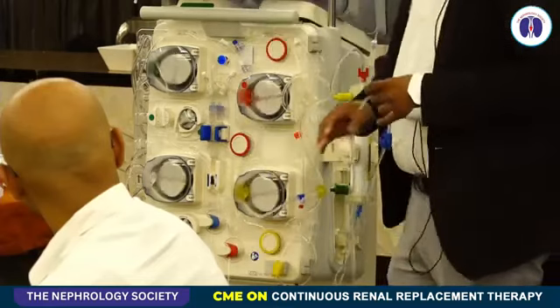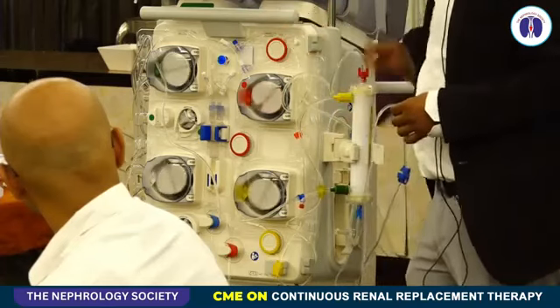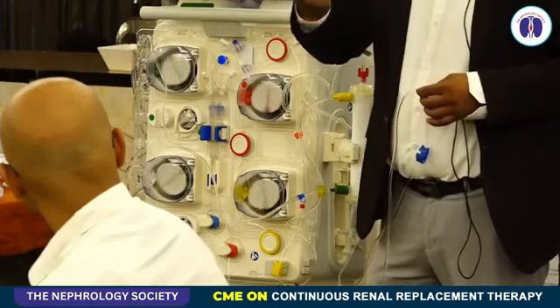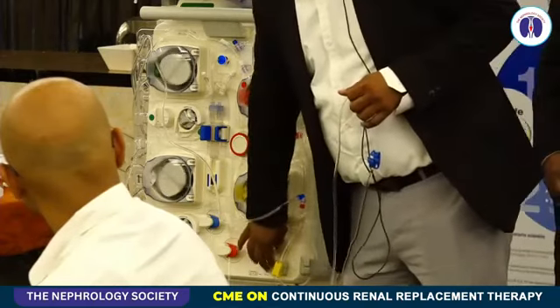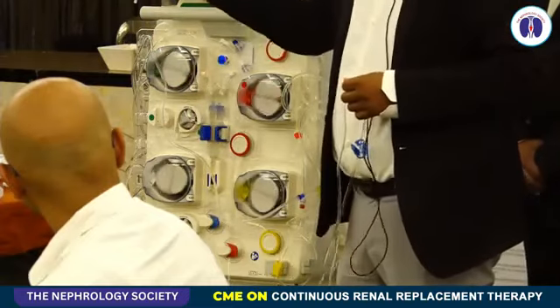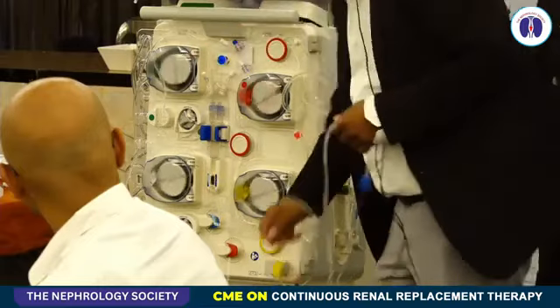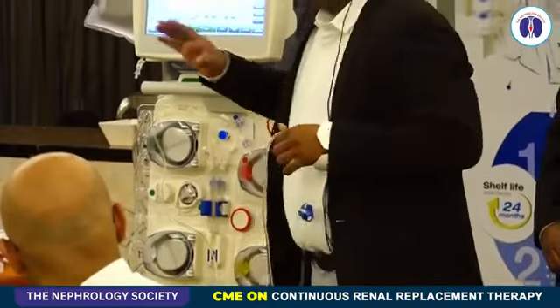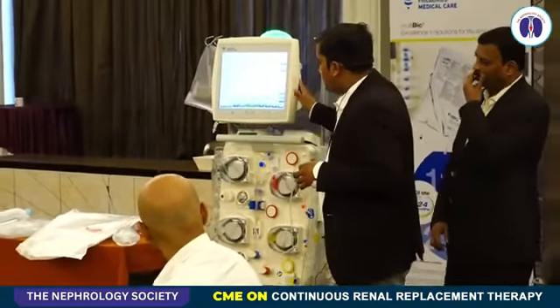Sometimes in acute liver failure, where the patient has a high bilirubin, we have seen that the effluent comes more yellowish in nature, more concentrated, and that time it also used to trigger. So we have a feature where we can turn off the blood leak detection because it's a limitation. Other than these blood alarms, there are some system related alarms.